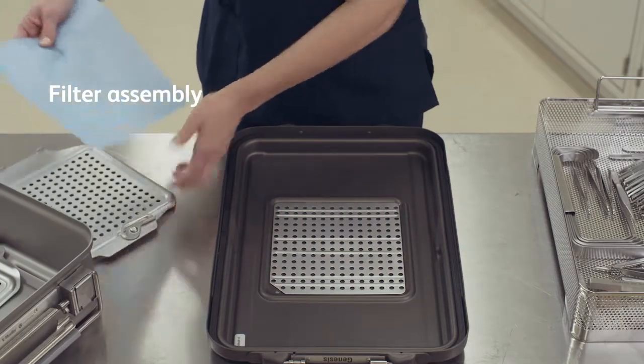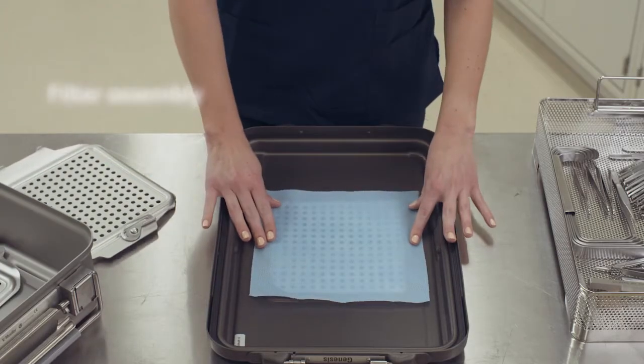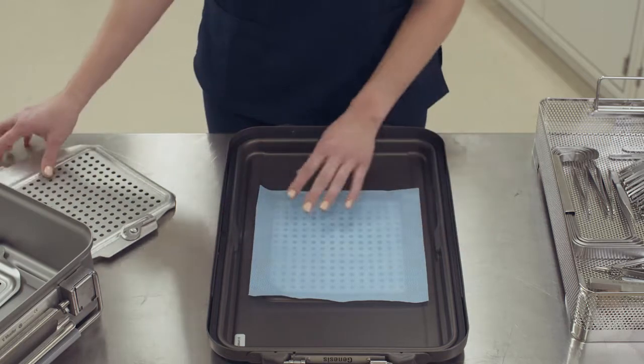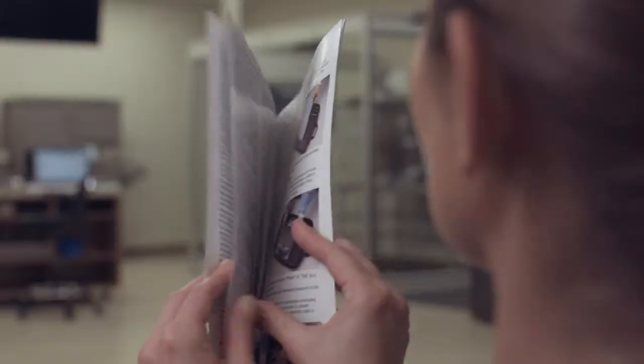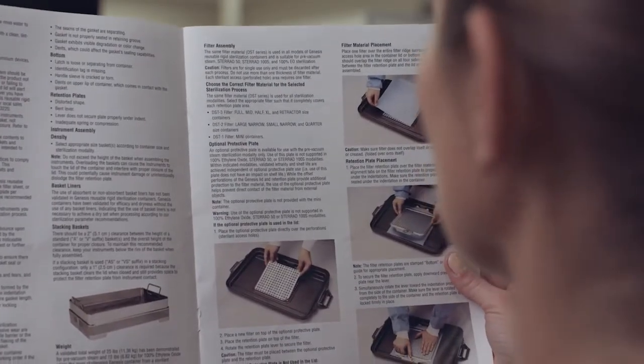A filter is required for all sterilization cycles. Genesis filters are for single use only and must be discarded after each process. See the Genesis instructions for the selection of filter sizes.